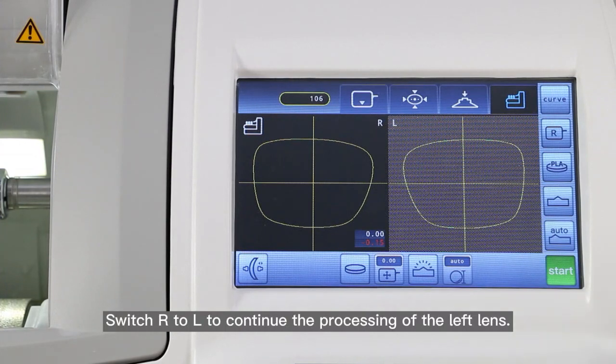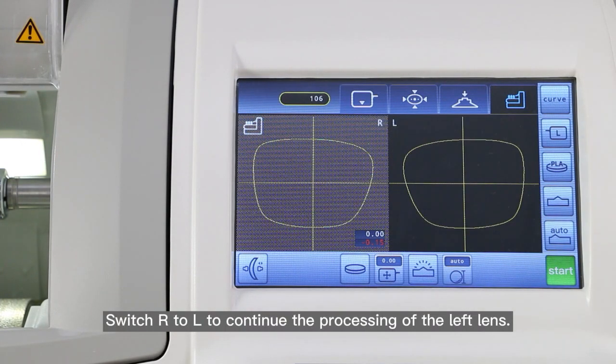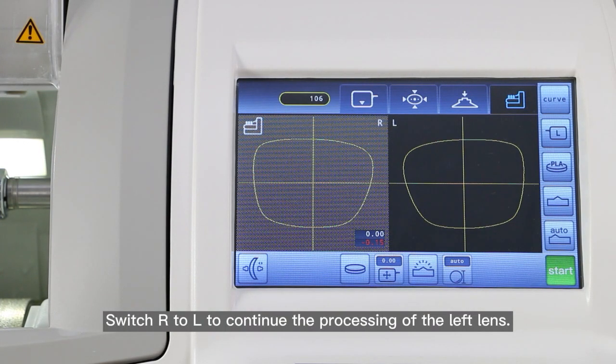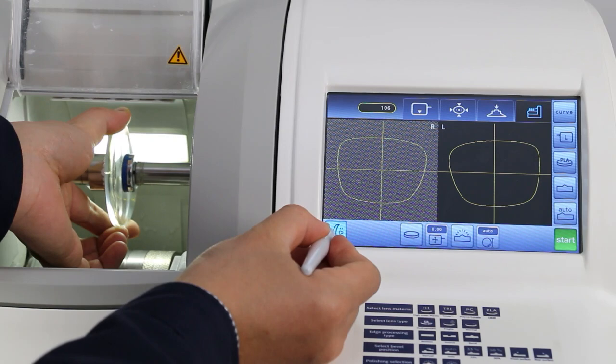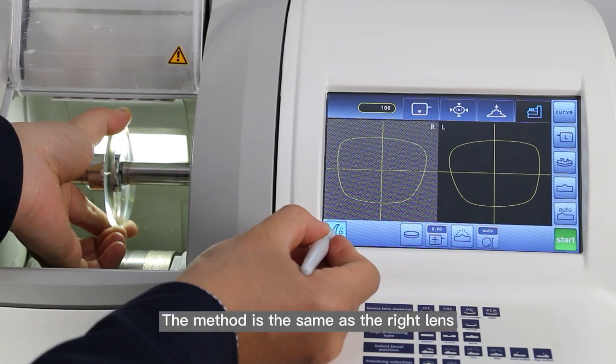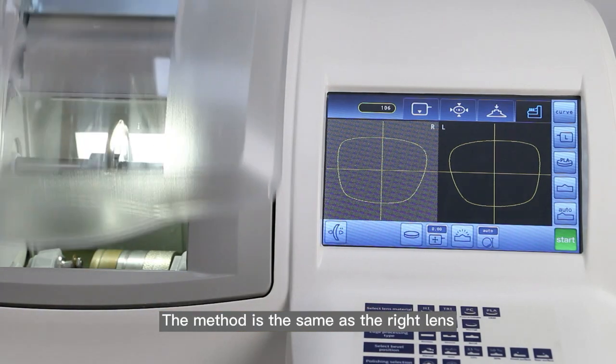When the retouch is finished, remove the lens. The method is the same as the right lens.